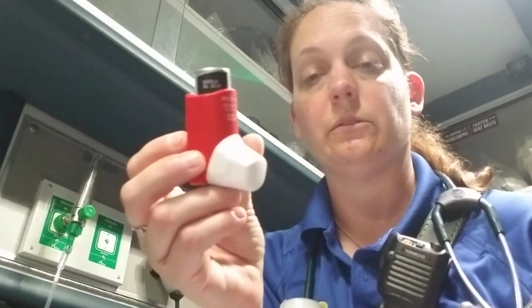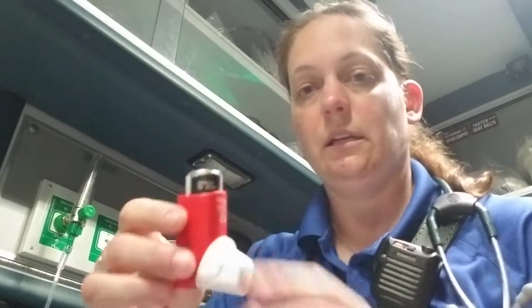So then his next medication is the metered dose inhaler, which is this right here, and it's QVAR, which is a corticosteroid. It's administered twice a day, 1 puff. It's 80 mics per puff. So this is to reduce any of the inflammation in his lungs. It'll last about 12 hours, which is why once in the morning, once at night.